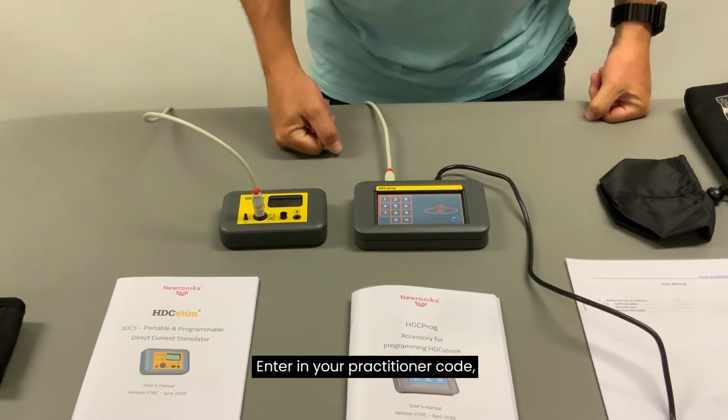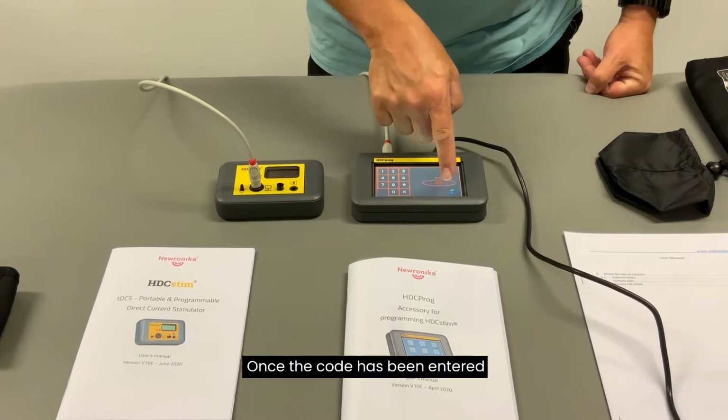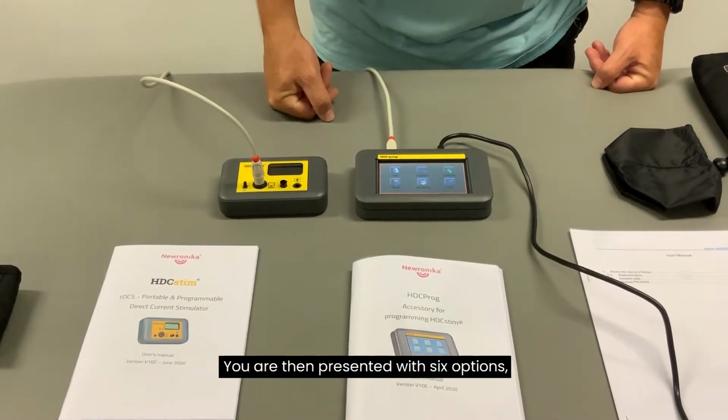Enter your practitioner code. Each practitioner has their own individual code. Once the code has been entered, press the program button. You are then presented with 6 options.